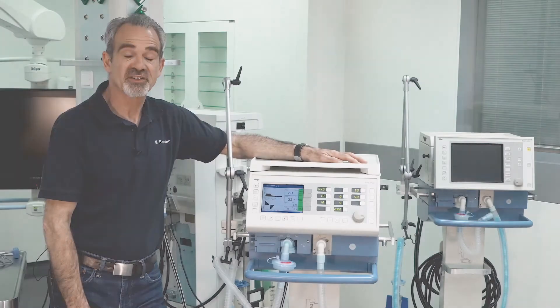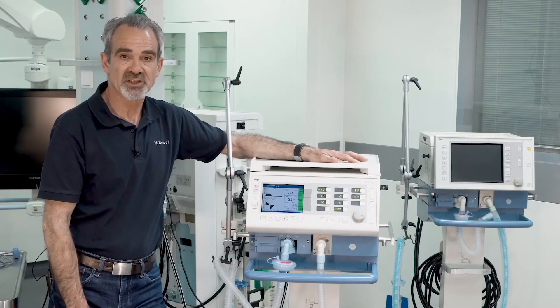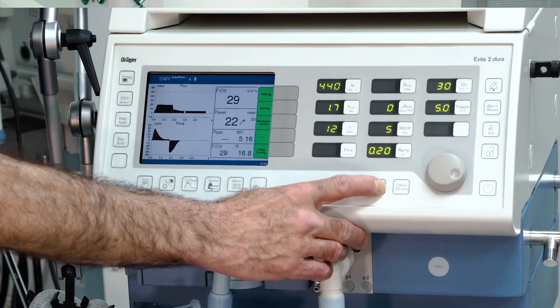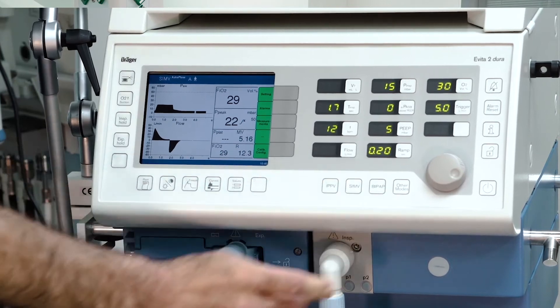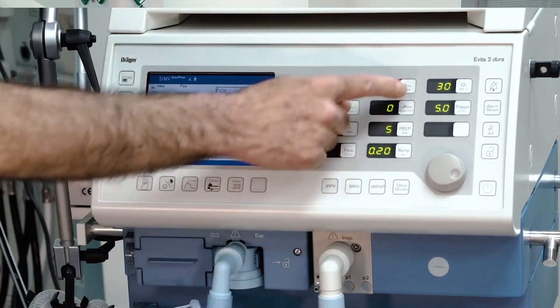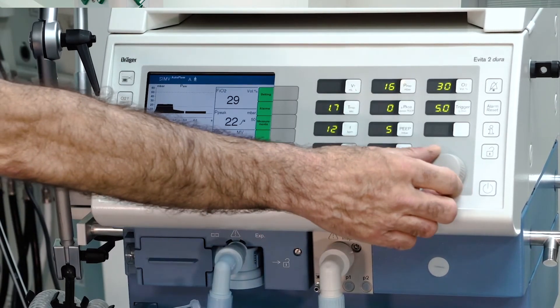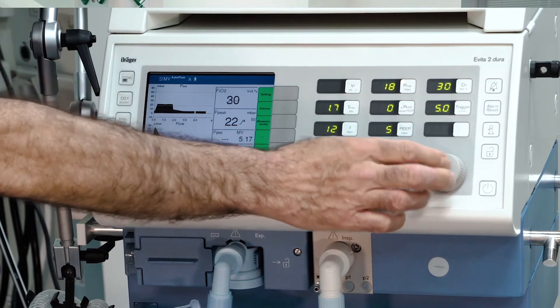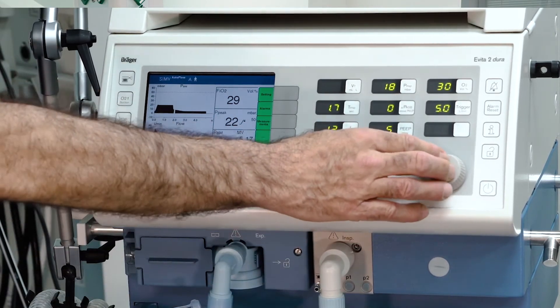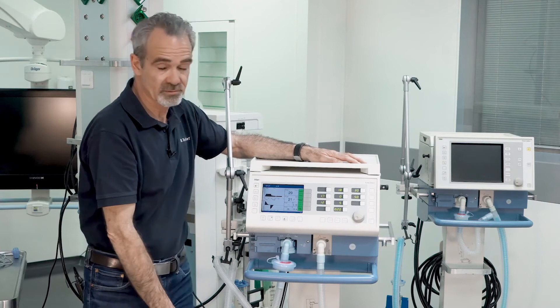For changing the ventilation mode during operation, push the key for the desired ventilation mode, adapt your values, confirm, and confirm with the rotary knob again.